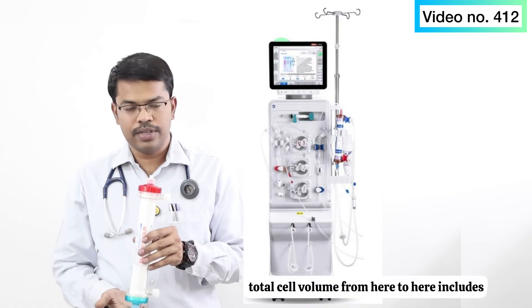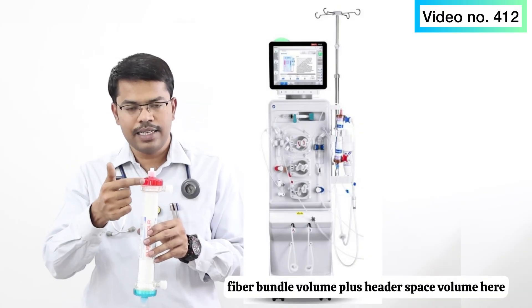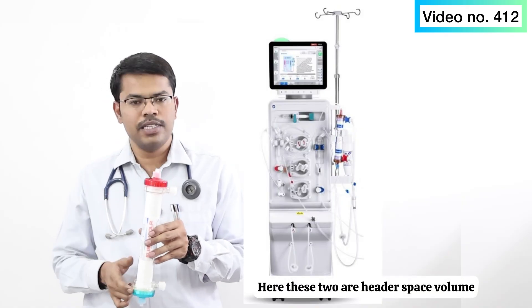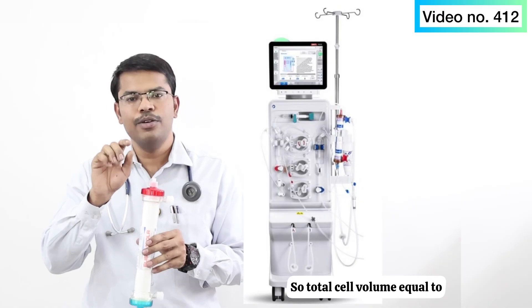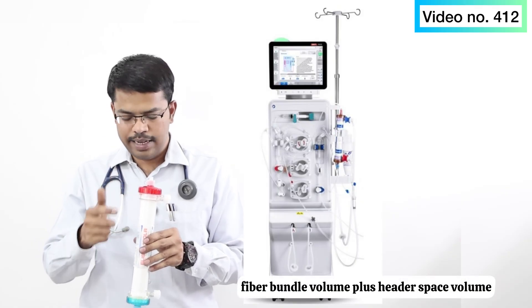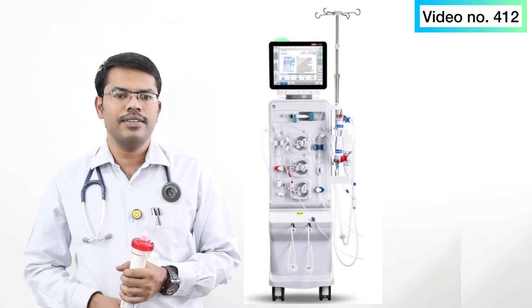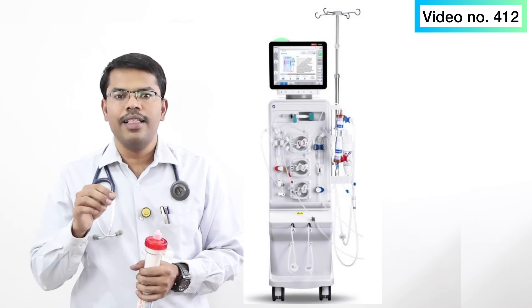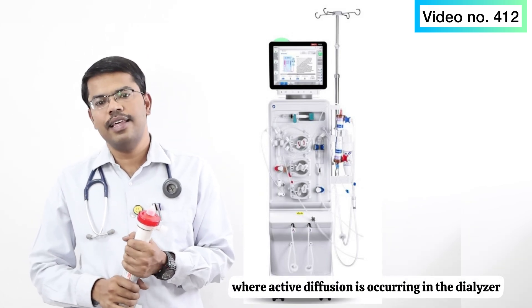Total cell volume equals fiber bundle volume plus header space volume — these two header space areas combined with the fiber bundle volume make up the total cell volume. Fiber bundle volume is more important because that is the place where active diffusion is occurring in the dialyzer.